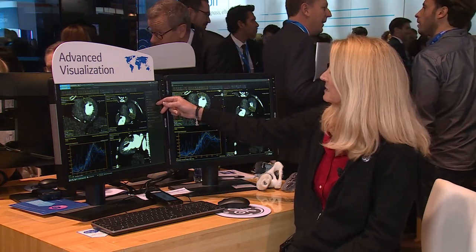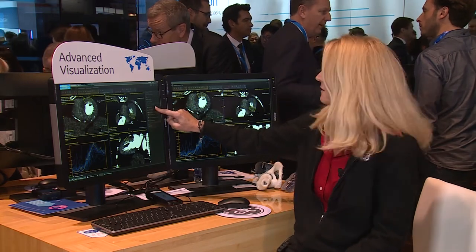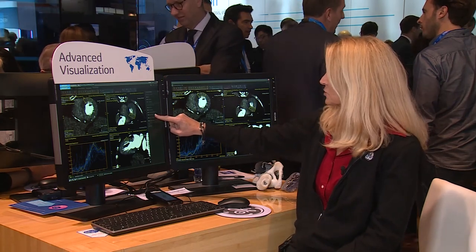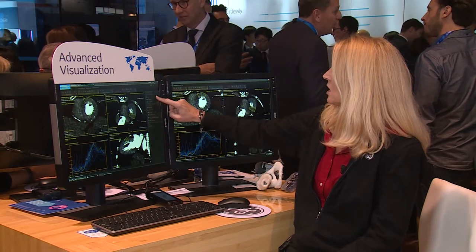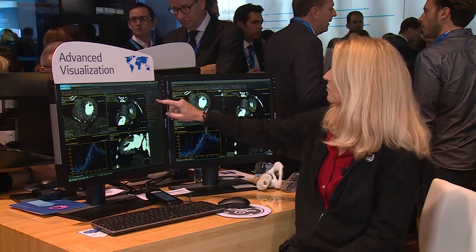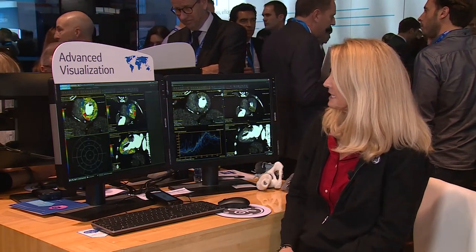We have functional information that can be shown. We will see blood flow. We can get blood volume, mean slope of increase, and mean transit time. We can also change our myocardium overlay, where we could have no myocardium overlay or the myocardium with the 17 segments.